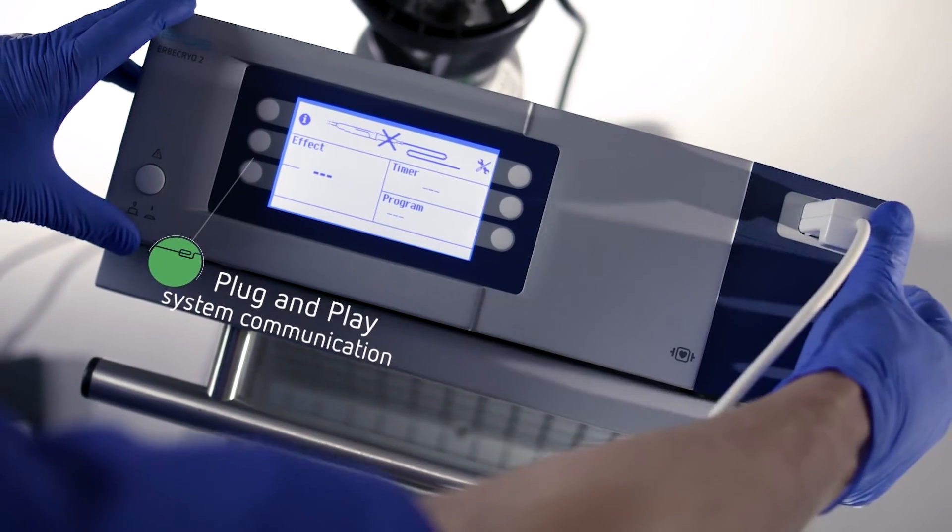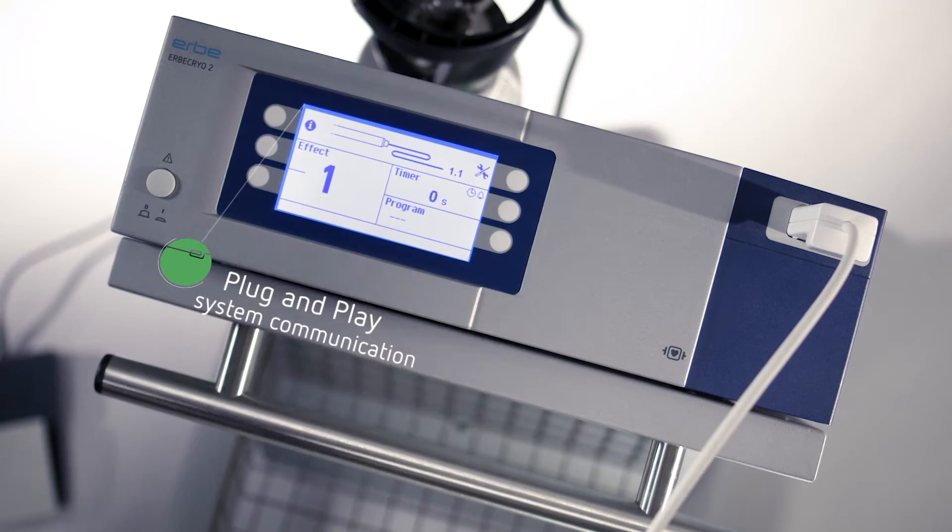Once connected, the cryoprobes are automatically recognized by the unit and the appropriate parameters are set.